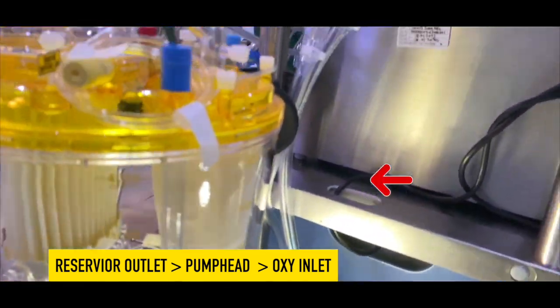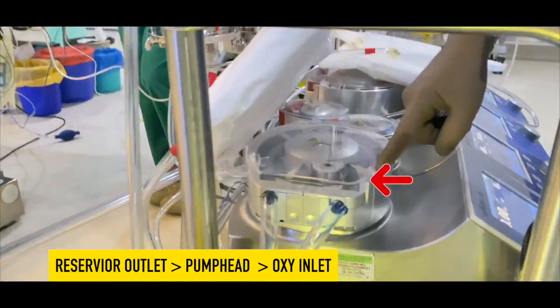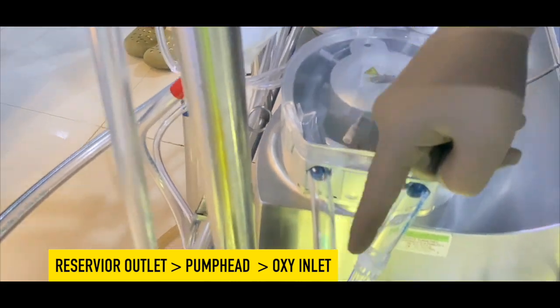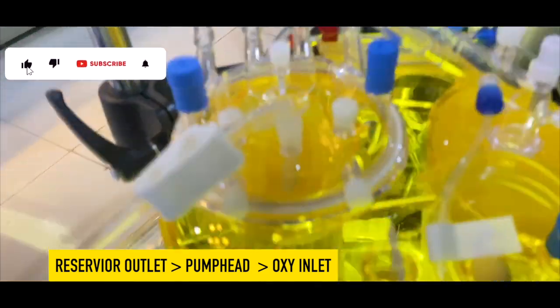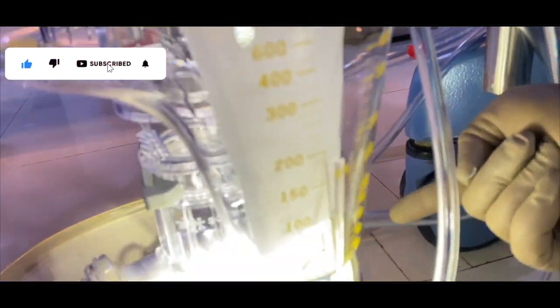You can see in this video I have connected pump head inlet to reservoir outlet. After fixing the pump head, I am going to connect pump head outlet to oxygenator inlet.